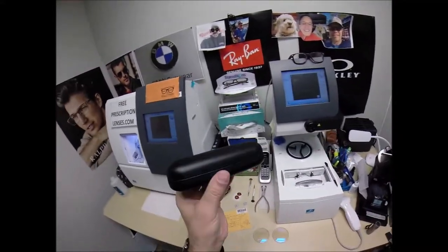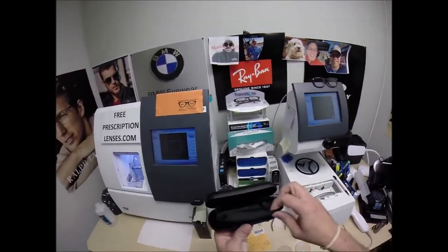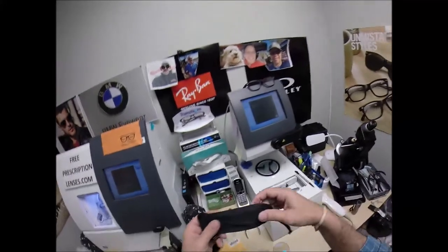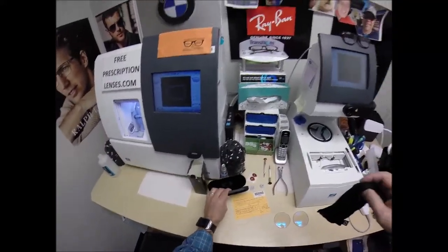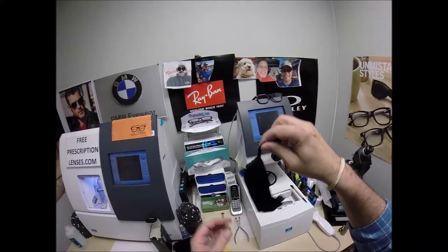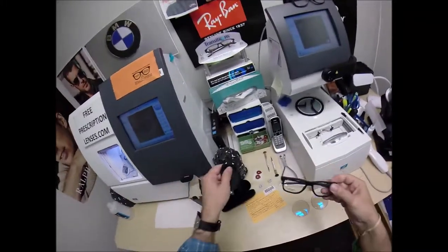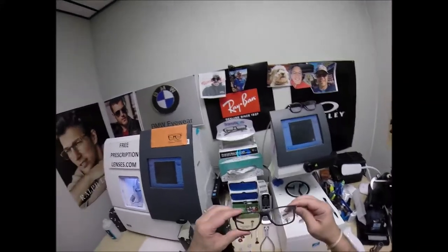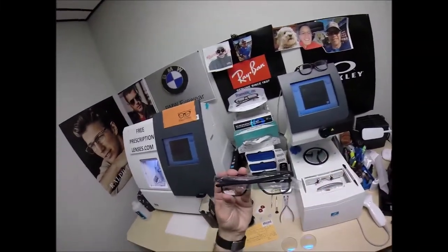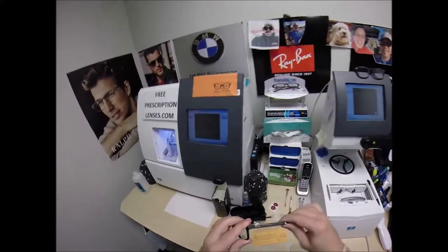Comes with the Oakley hard shell case inside. Now this is an Oakley. If you don't want to carry the hard case around with you, they have the carrying bag which doubles as the cleaning cloth. Use that to clean your lenses. And of course it comes with a little plastic sleeve on the temple to protect the temples from rubbing together during shipping.